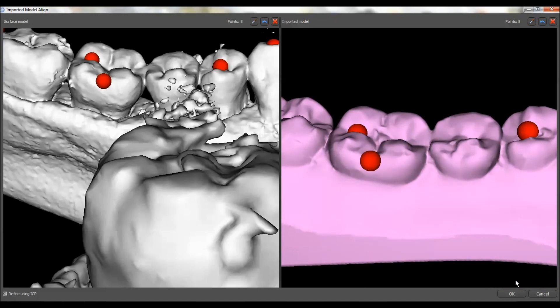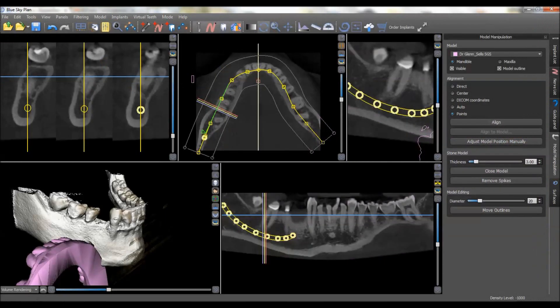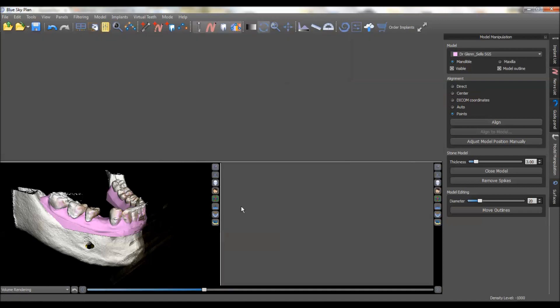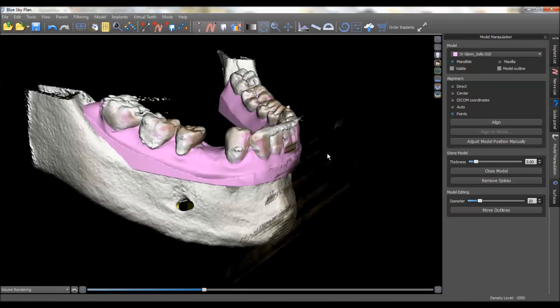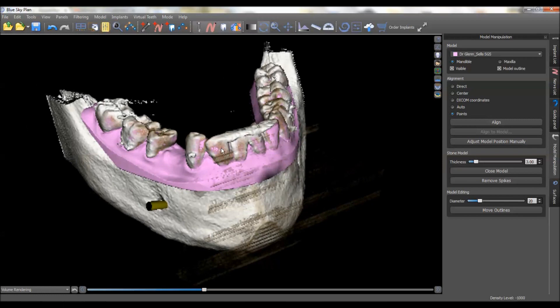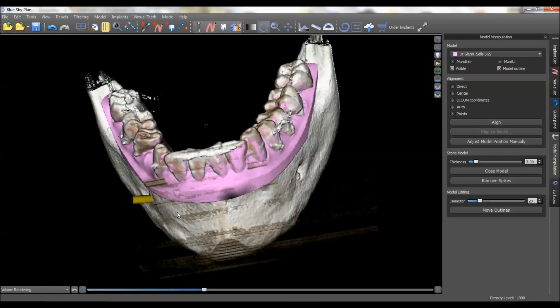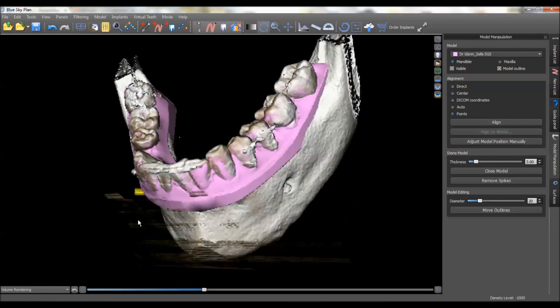So that's eight points. Let's go ahead and click OK. You'll notice that it drops this into the lower left-hand menu. When you look at this you should see a mottled appearance of these models showing through one another — you can see a little purple burning through the white there. And if you've done a good stitch, you should notice that all the way around the arch.